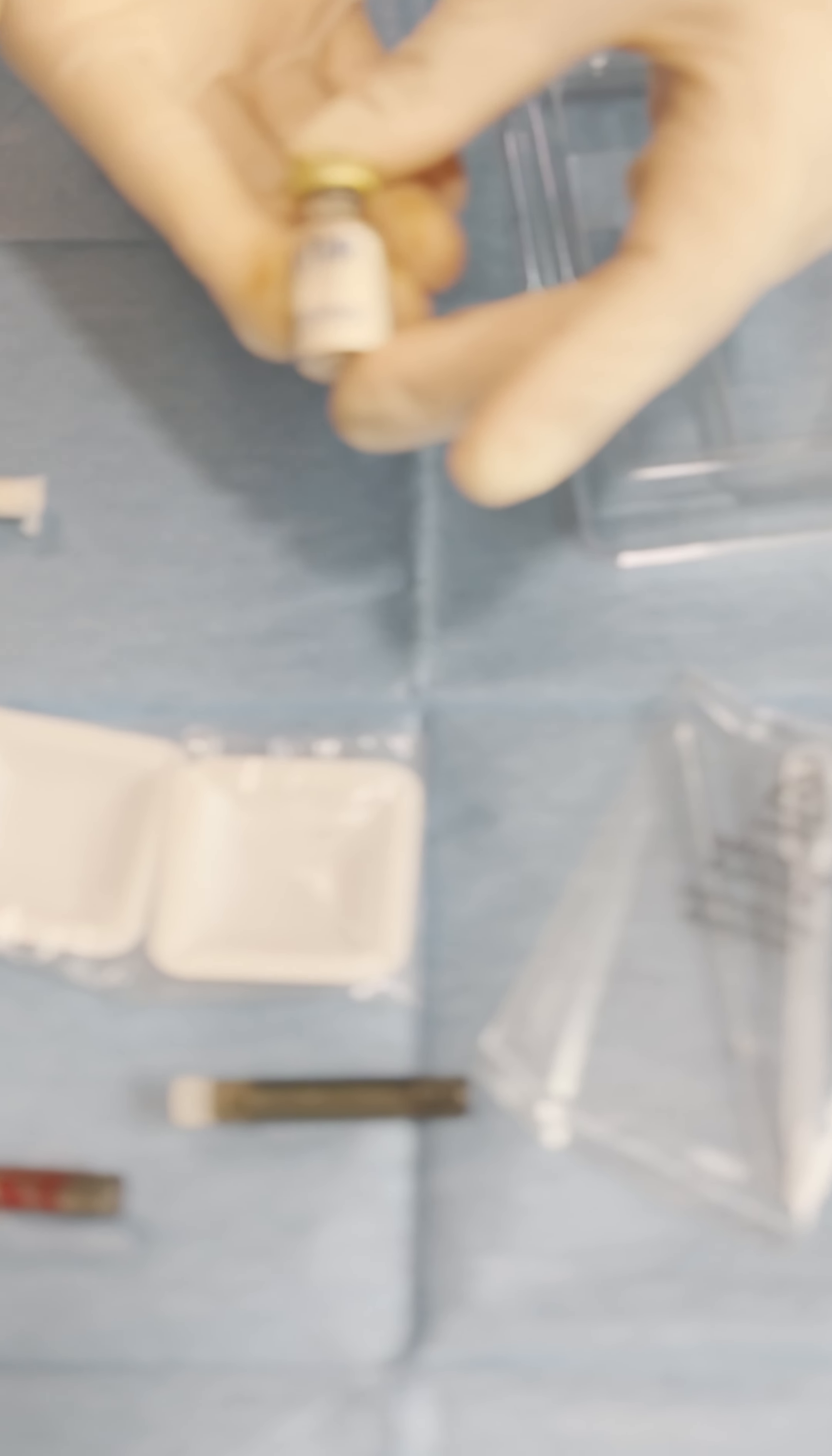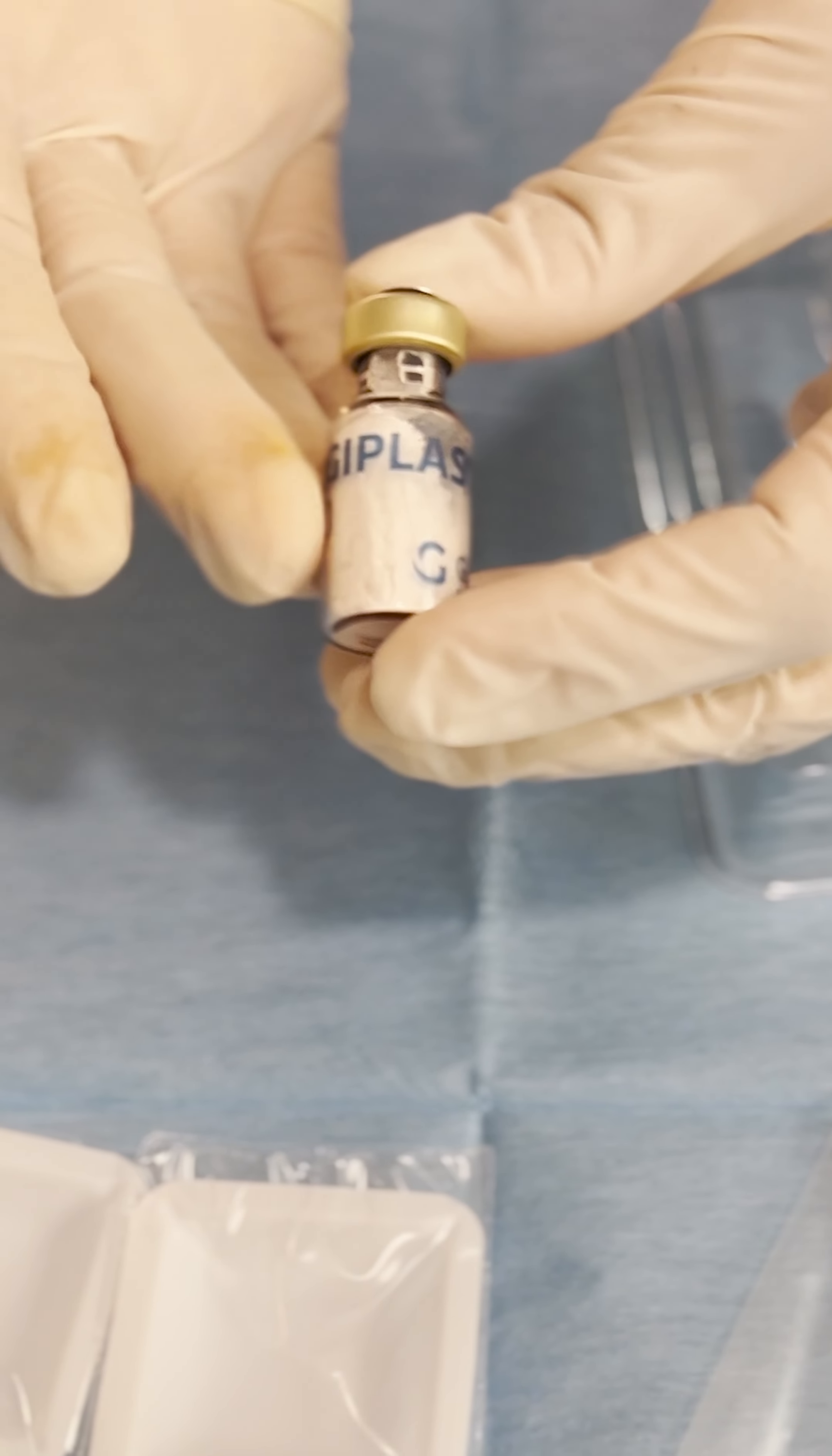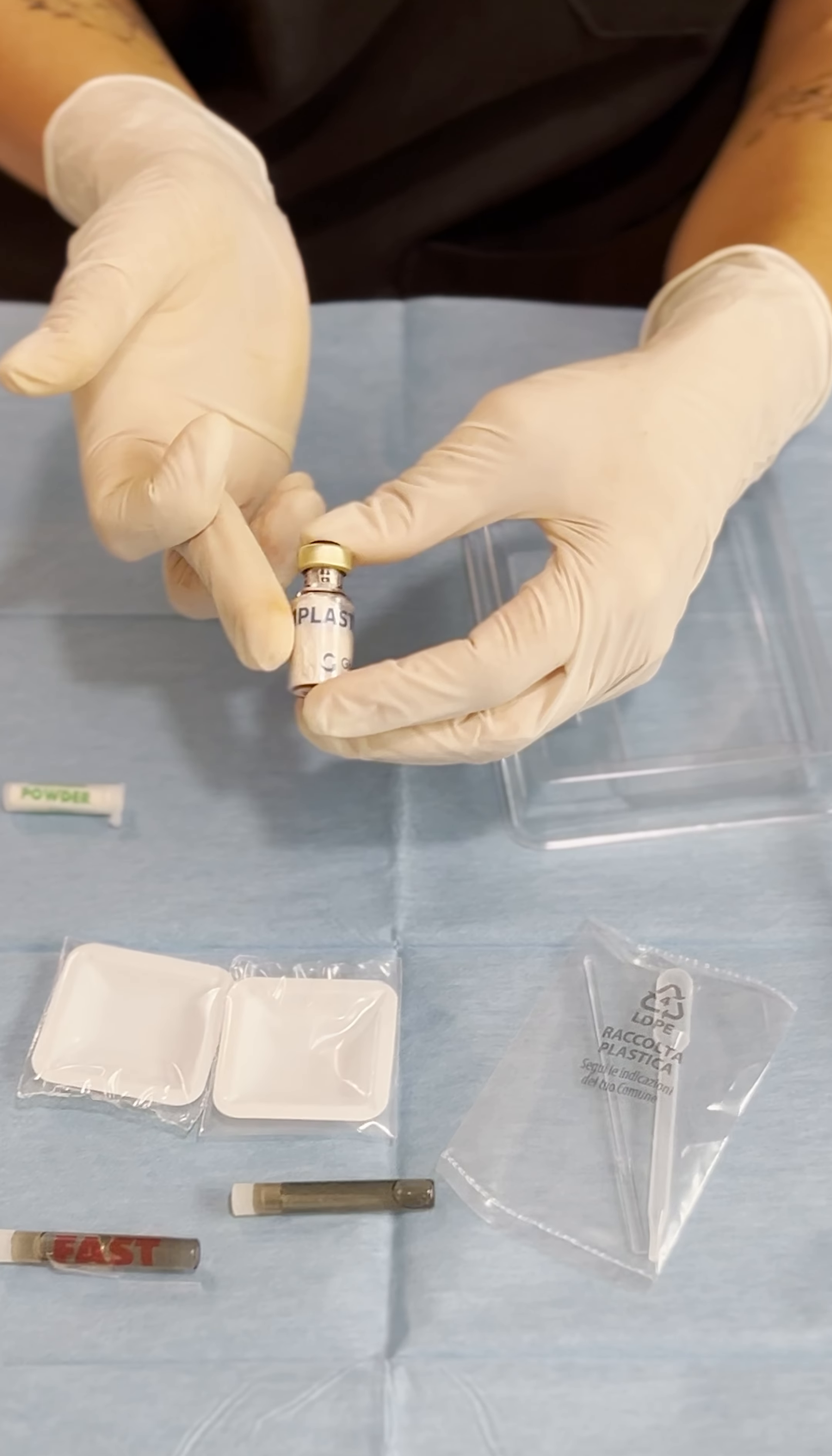They go from 0.25 to 0.5 and we use this in small defect non-critical defects so minor than five millimeters in diameter, aesthetic areas and also small cystic bone cavities.